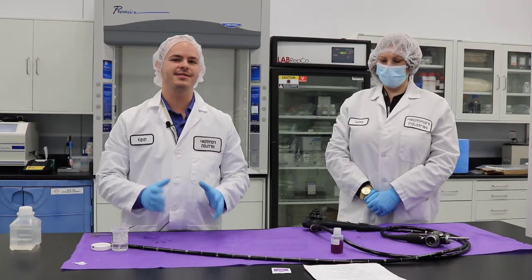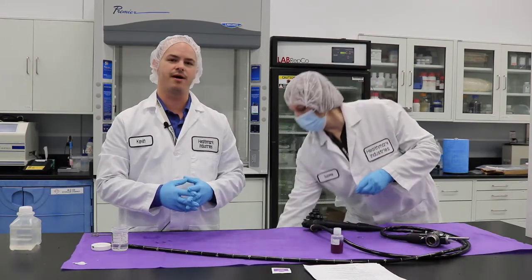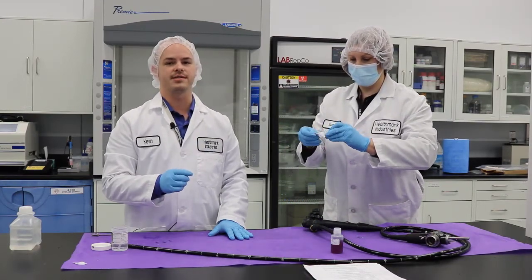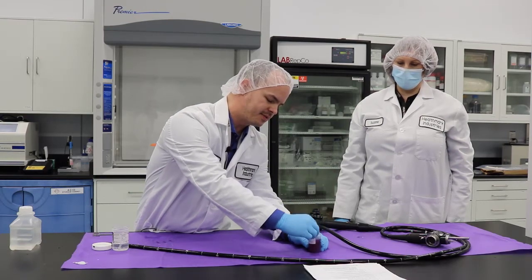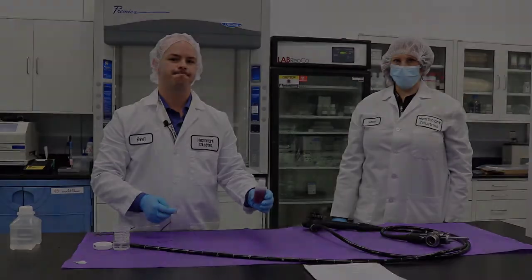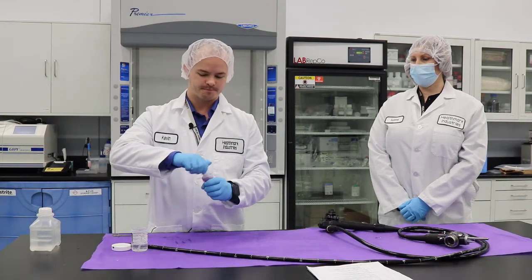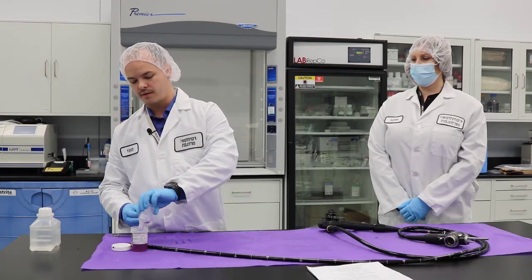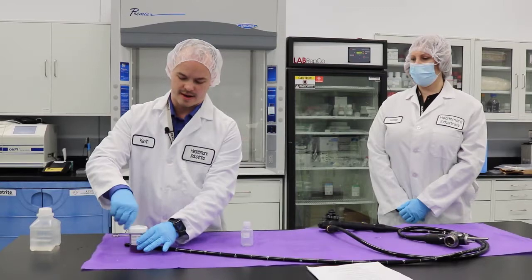For the next step, we're going to get our DE broth prepared for our sample. The facilitator is going to take off the seal on the DE broth container and present an alcohol wipe for me to cleanse it. We're going to wipe it down top to bottom so that it's low level disinfected. Now we're going to finish setting up our sample — we're going to open up the lid and empty the entire contents of the DE broth into our sample container, then tightly close the lid.